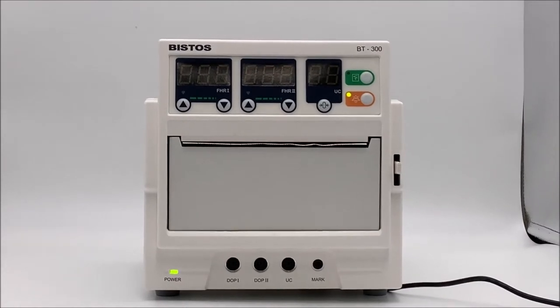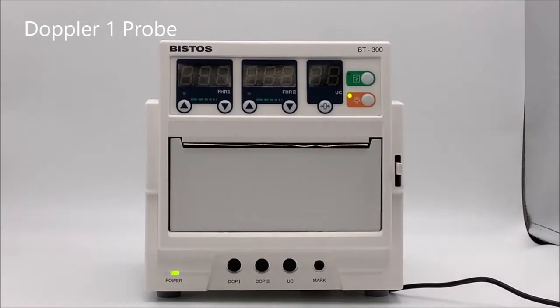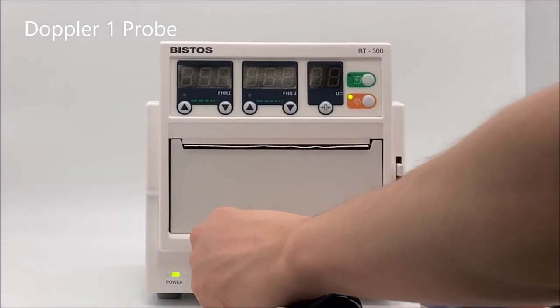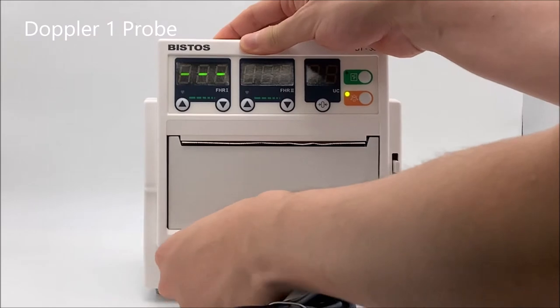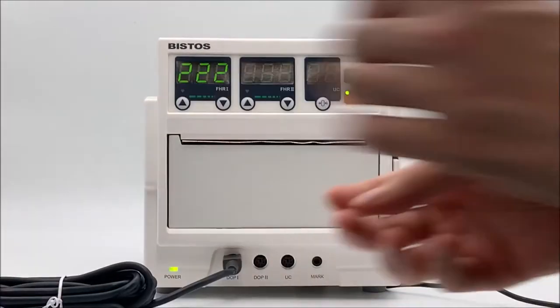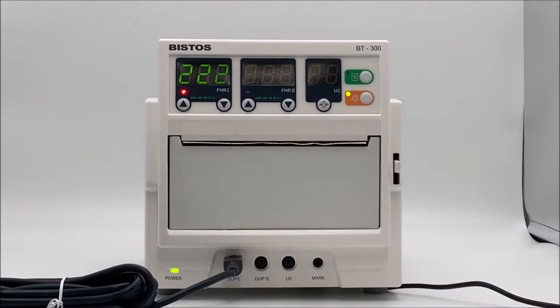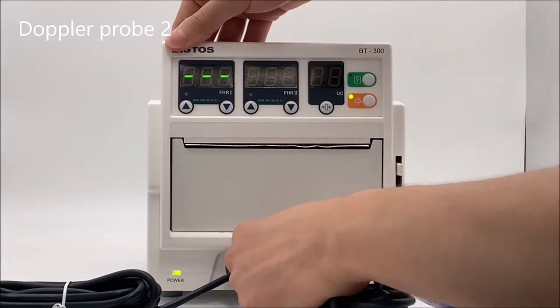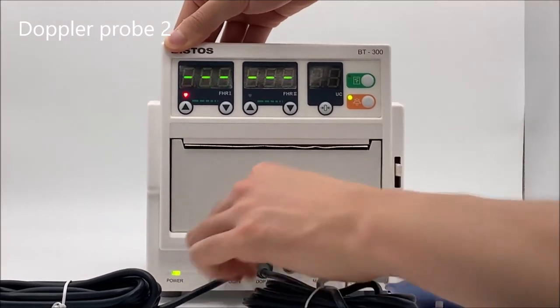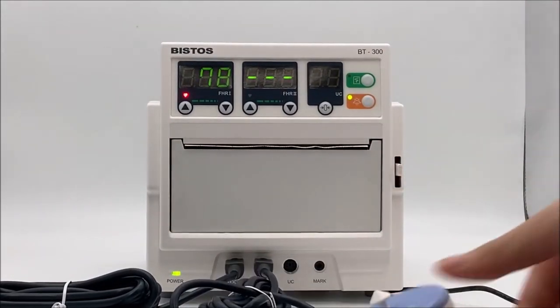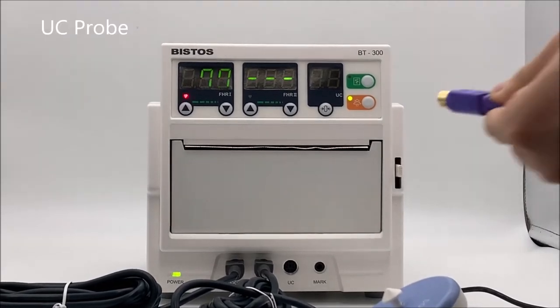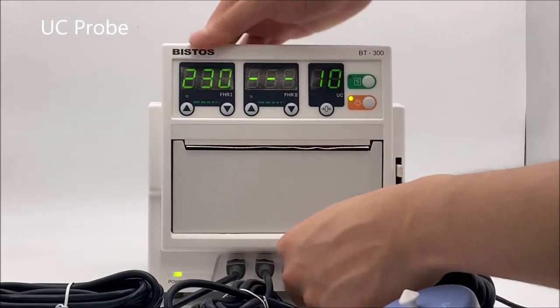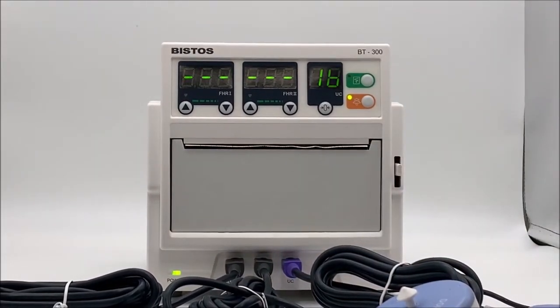How to connect probes. Doppler-1 probe. Doppler probe-2. UC probe. AST probe.